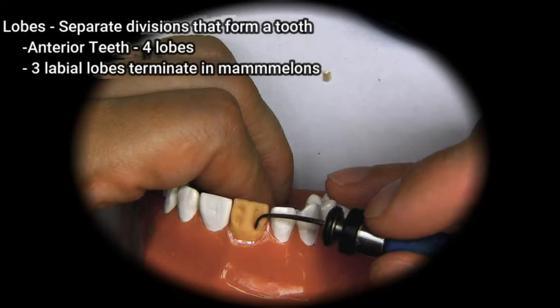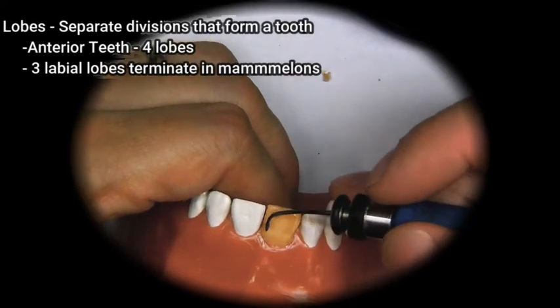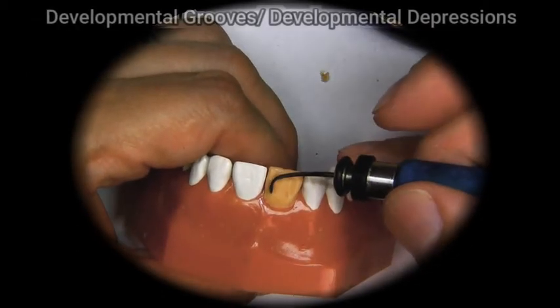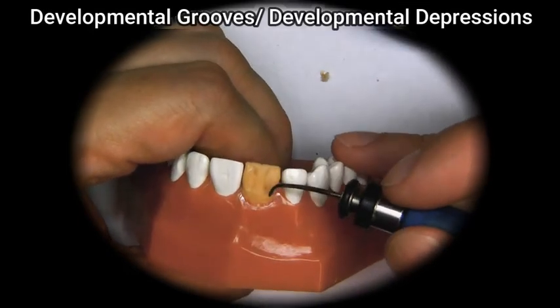So the way we fill them in is we build the mesial, the distal, and the central lobes together. And as we build them together, we are going to almost automatically build the developmental grooves.